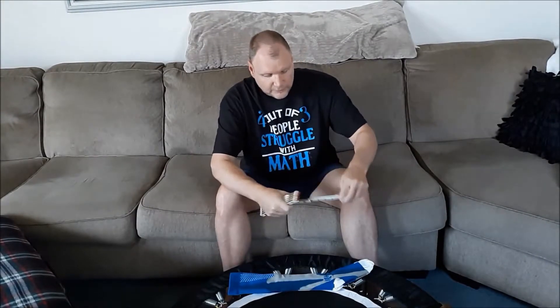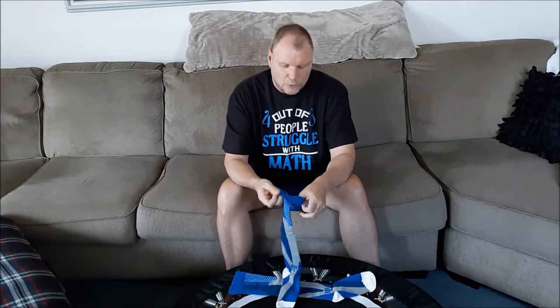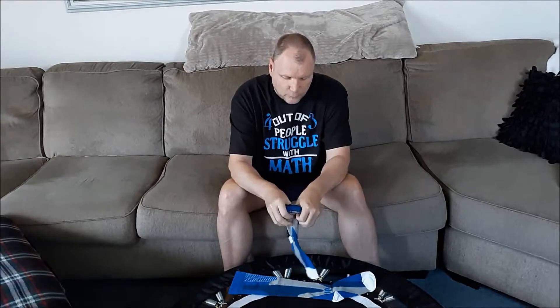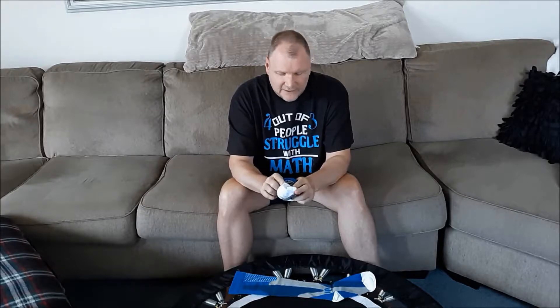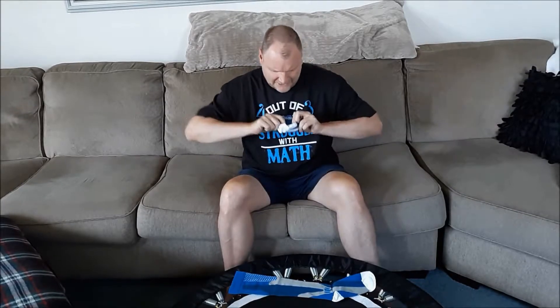The overall measurement is also coming to about 22 inches. My back and neck is getting me today. So with these you have to roll them down into like a little round circle, like a scrunchie — like women wear on the back of their hair. Your knees are pretty tight so you may need some assistance. I just got off the rebounder so I'm a little bit looser even though my neck is hurting.